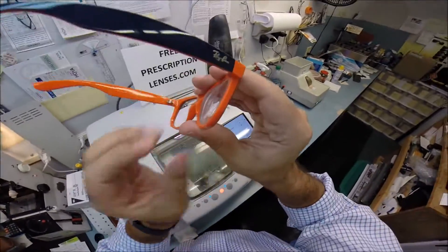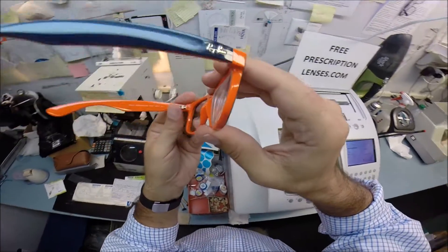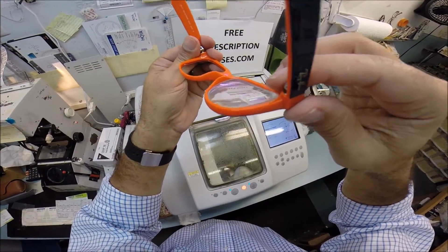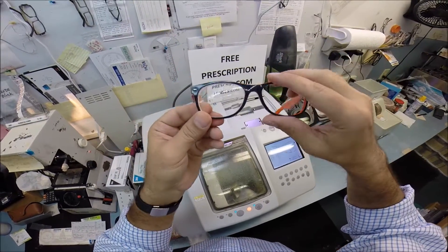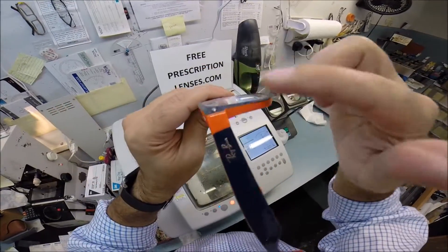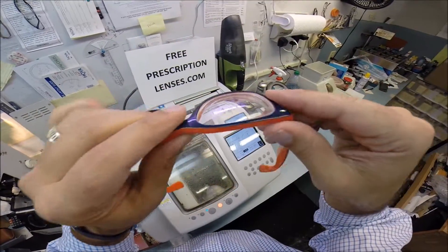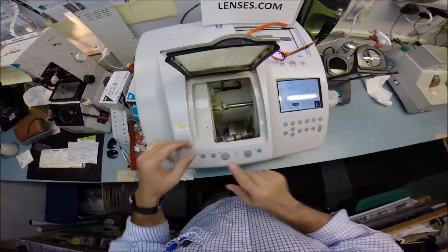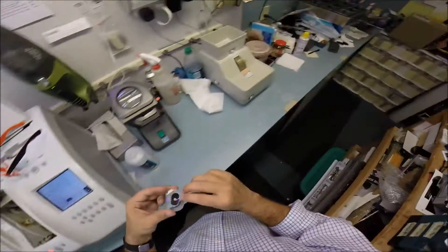Now, this is your strongest lens. You have six diopters of full power, and this is the larger eye size, but you can see how your lens fits perfectly inside the frame. That's the thinner, lighter-weight polycarb, plus the aspheric lenses, where it's so much flatter, it's not bulging outward. You have a beautiful finish cosmetic value. That's what happens when a licensed optician cuts lenses.